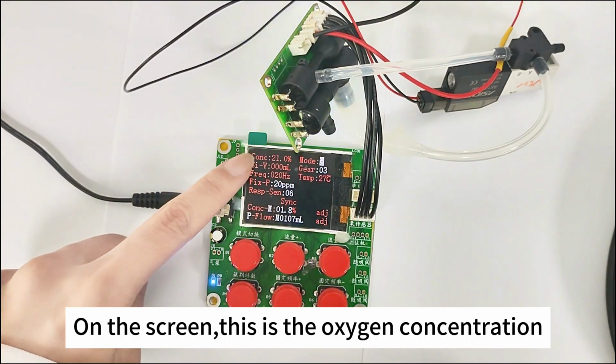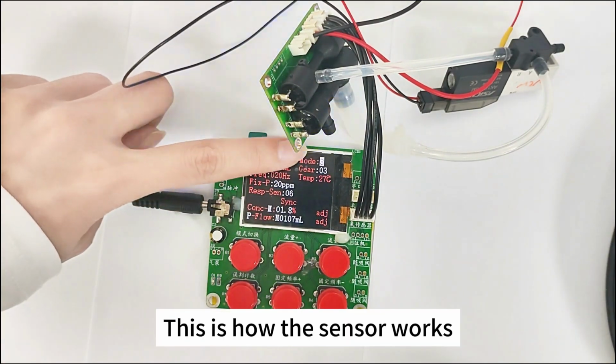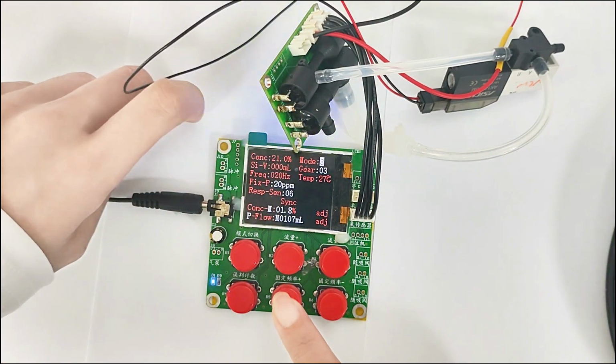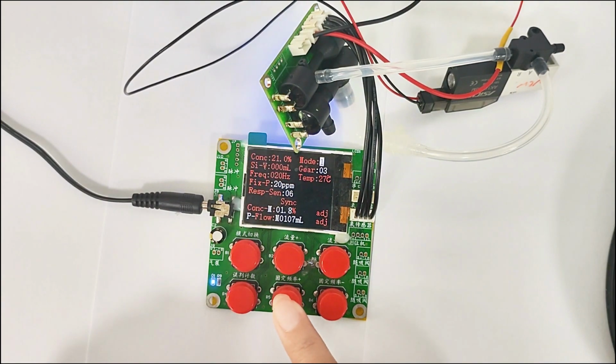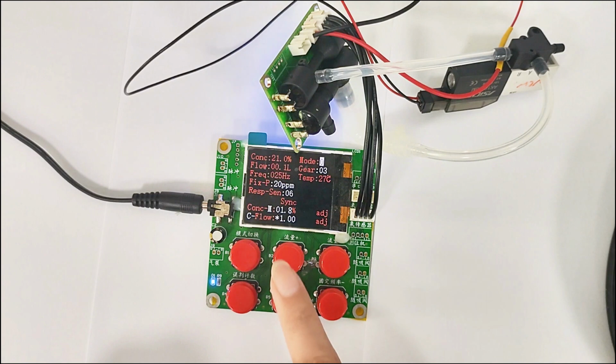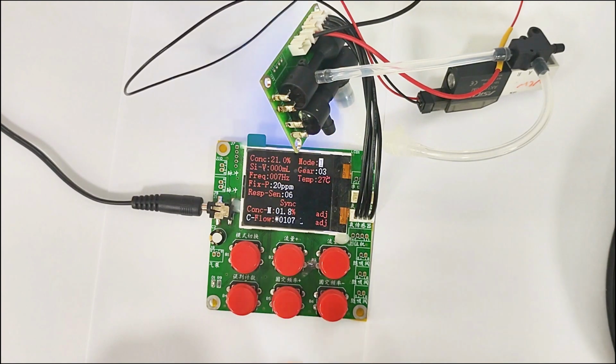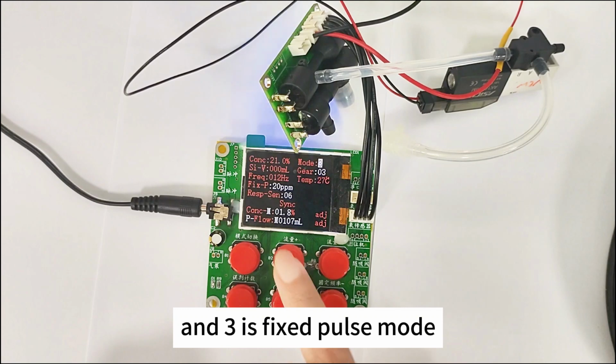On the screen, this is the oxygen concentration. This is how the sensor works. 0 is off mode. 1 is pulse mode. 2 is direct supply mode. And 3 is fixed pulse mode.